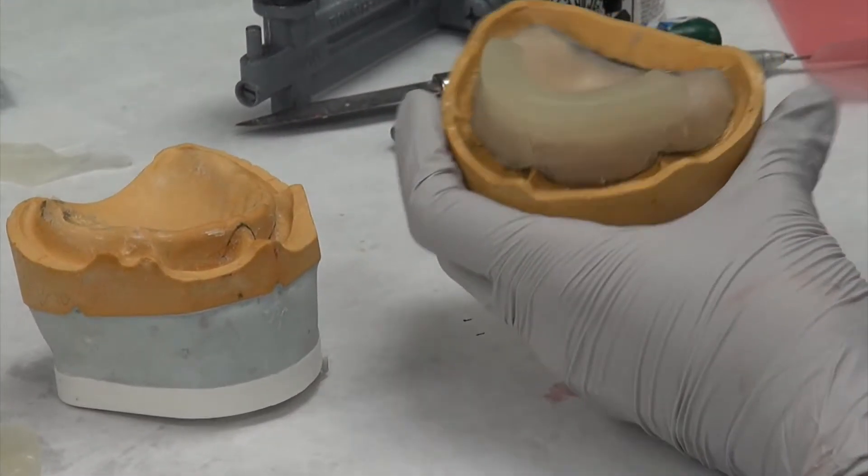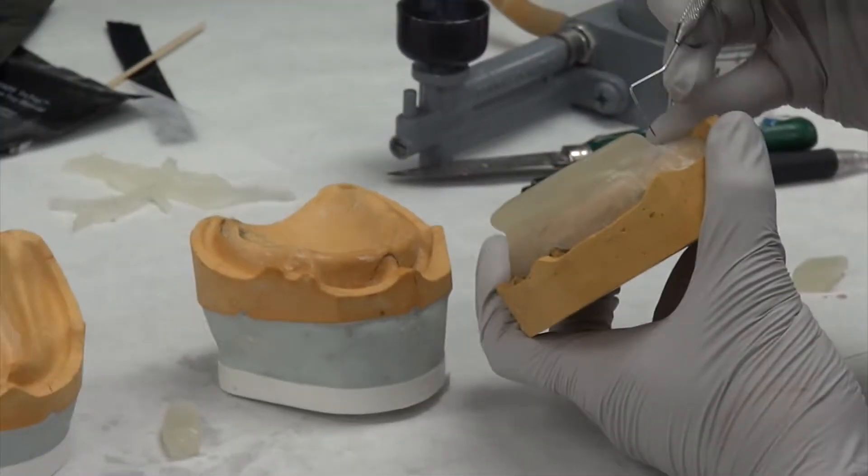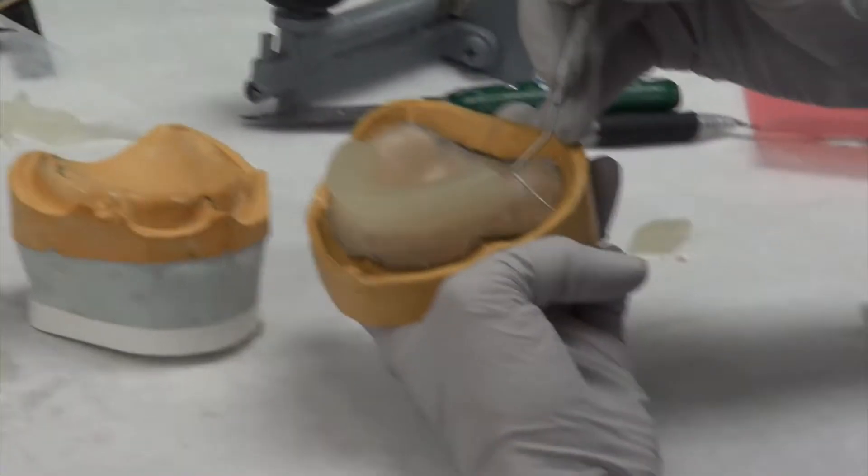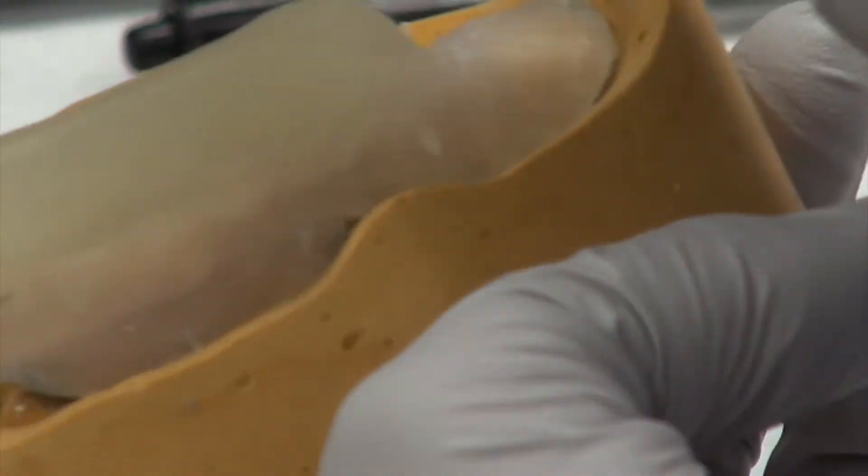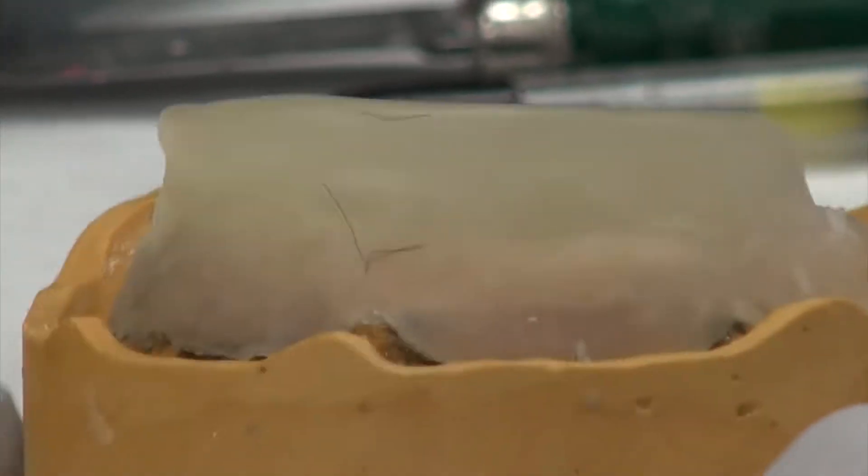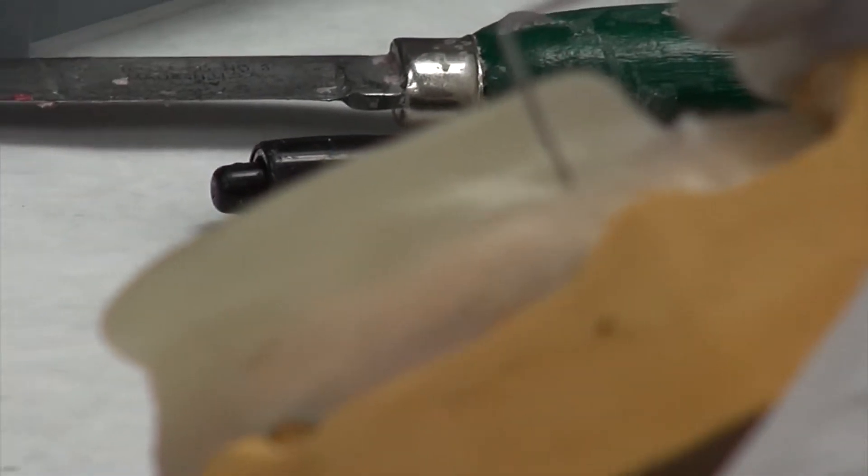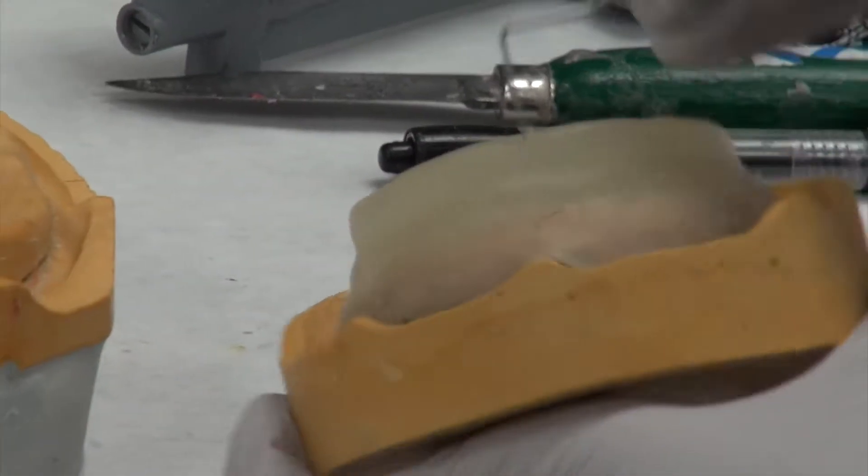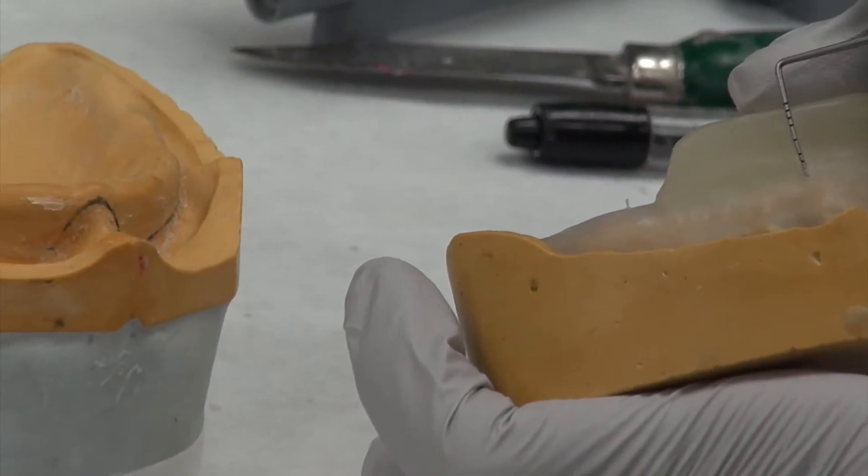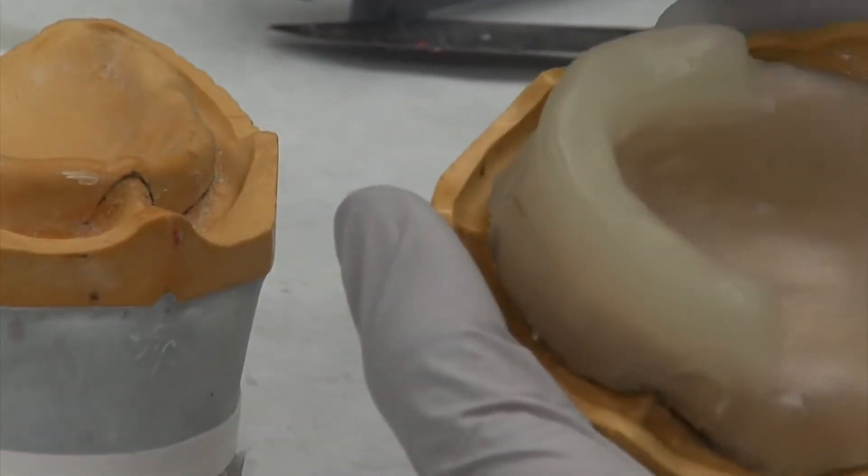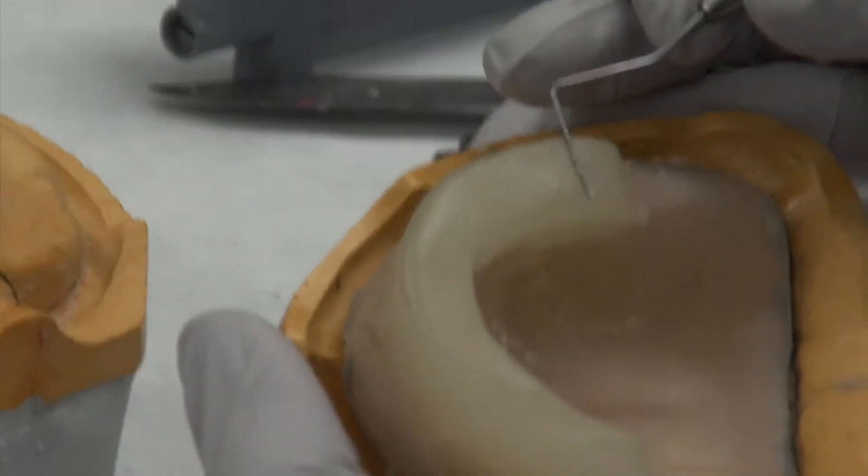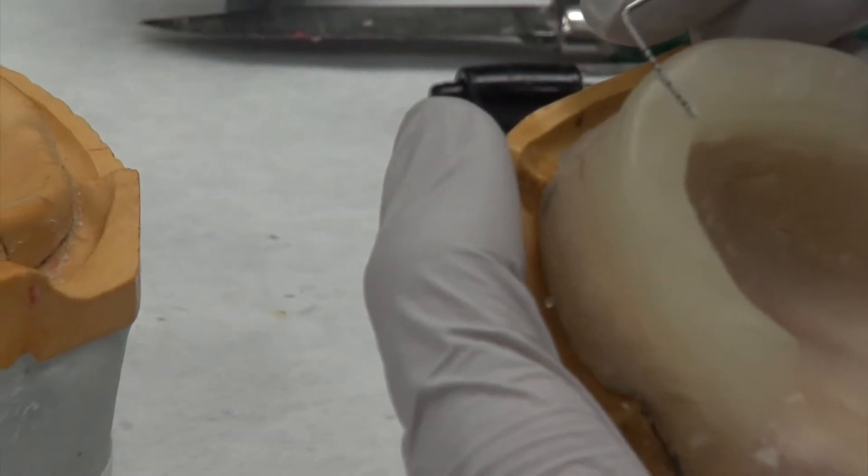Another key thing is these end right at that point and they are ending at a 45 degree angle. So I made that cut coming downwards. Also, you'll want to come back around and make sure that you're about 10 millimeters and then eight millimeters thick. Can you see how I'm eight millimeters there?